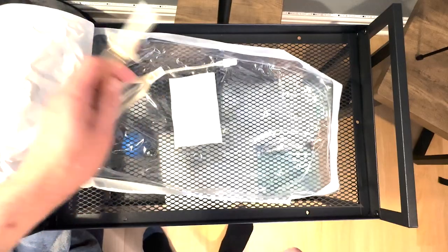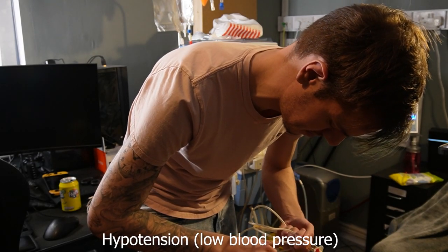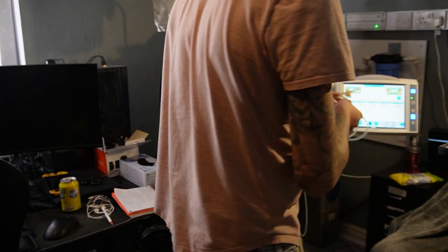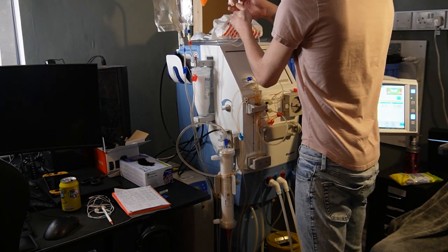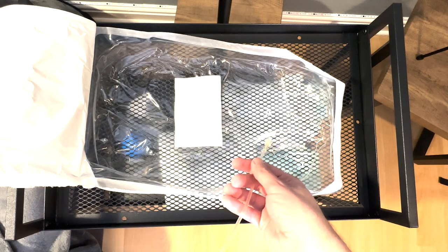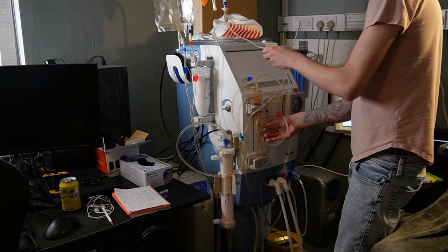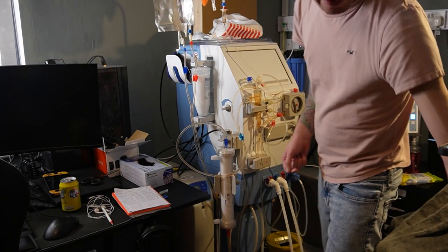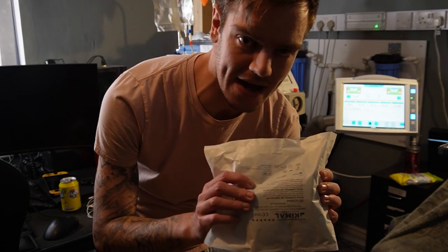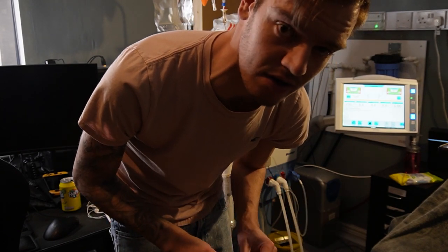Now let me put this emergency line in quickly. So this bit goes through our small bag, and it's essentially — if I go into a hypo, which basically means my blood pressure suddenly drops and I either lose consciousness or go really dizzy — we can feed some of this saline straight into me to get some of the fluid back, which should bring my blood pressure right back up. So just to finish it off, I need to feed the fluid through, make sure it's all coming through okay. There we go, it's come out into the bag, and then we attach that. There's a little one down here that we clamped earlier, and then that bit is for later on — that's where I'm coming off.